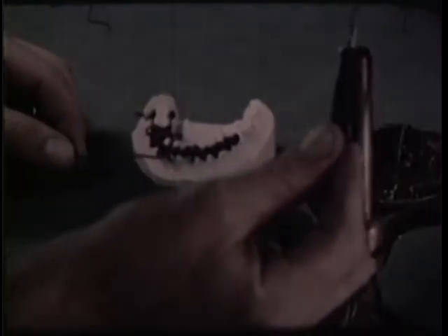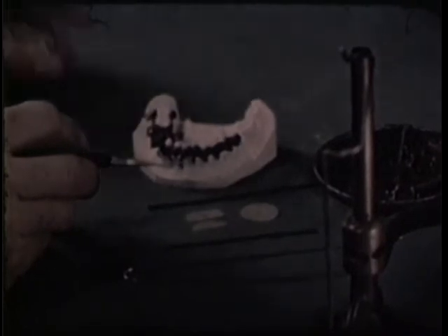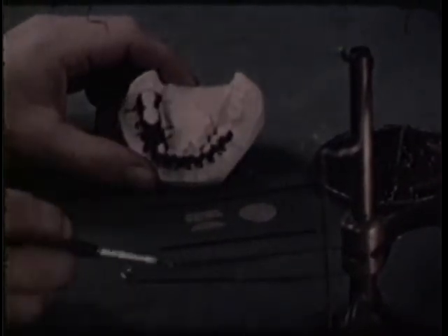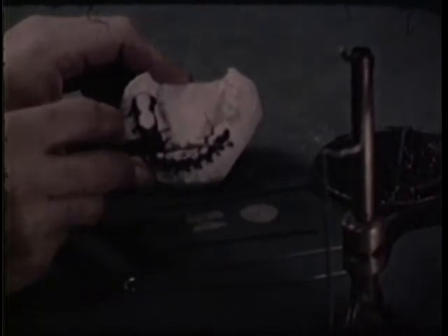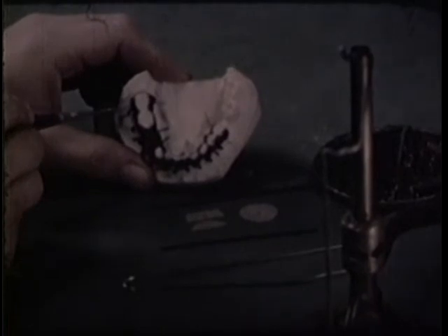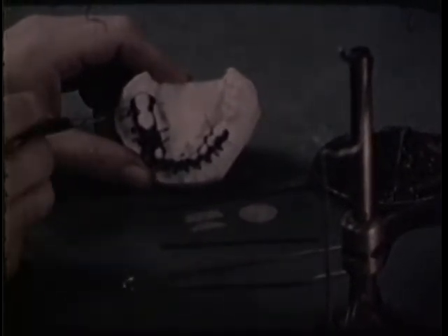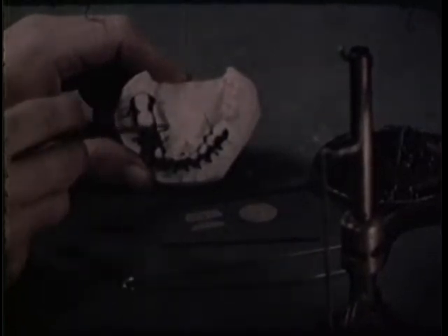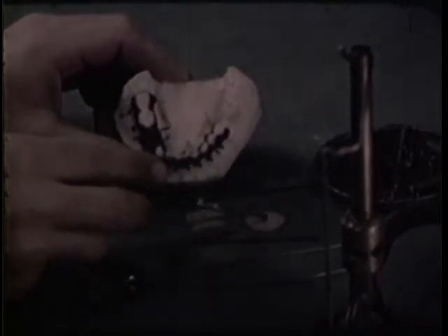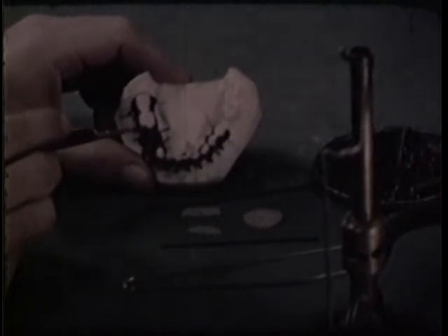The casting model is made of investment material. The waxing technique calls for the use of 18-gauge wax placed where the intermaxillary loops or hooks are to be formed. 18-gauge round or 14-gauge half-round gold wire is used for the posterior hinges. Extensions of the wire are left to help keep them in place in the investment while the casting is being made. Carbon points are placed in the planned screw holes to make it easier to drill the casting before it is tapped. Lightning discs are used as separators at the points where the splint joints will be located, and are easily removed after the splint is cast.